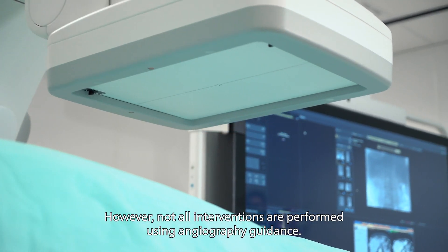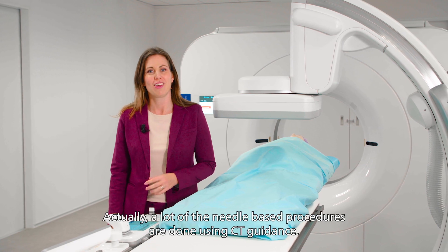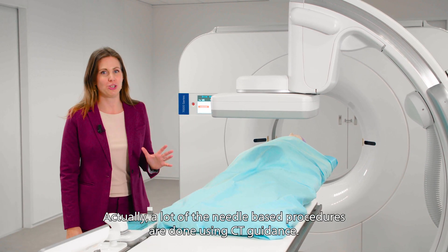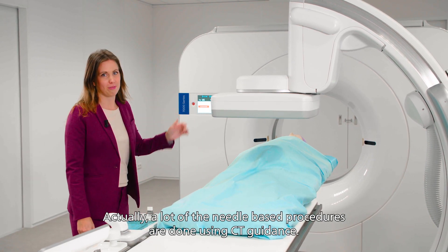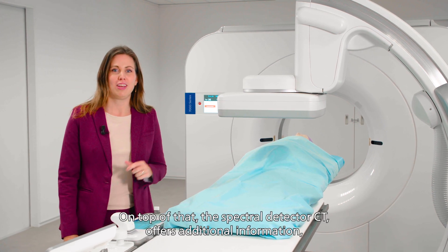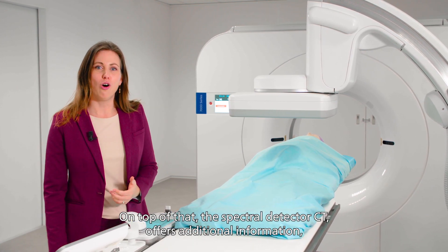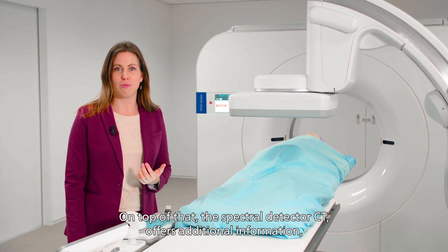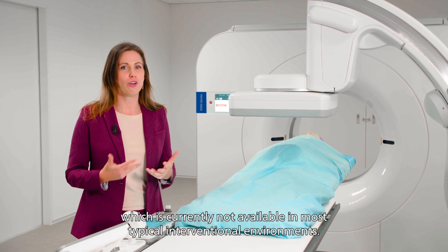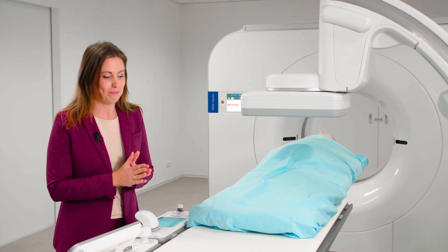However, not all interventions are performed using angiography guidance. Actually, a lot of the needle-based procedures are done using CT guidance. On top of that, the spectral detector CT offers additional information which is currently not available in most typical interventional environments.